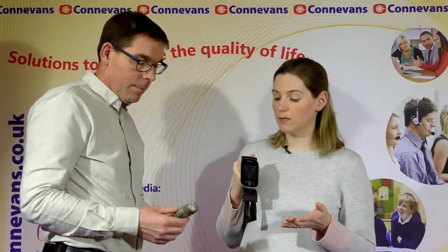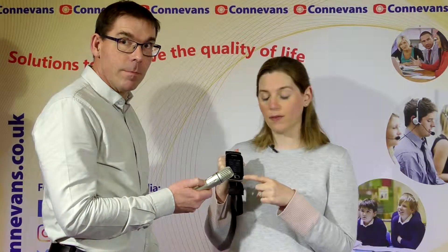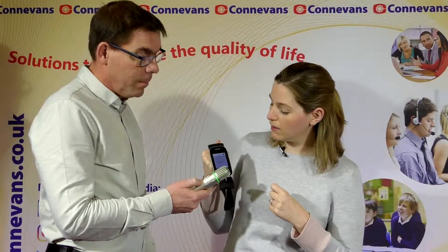If you want to add in other transmitters or other receivers, you just repeat the process — it's really straightforward. Here we've got a pass around microphone; it's showing blue because it doesn't have a network. Push the connect button, tick, it's all connected and the light's now gone green.